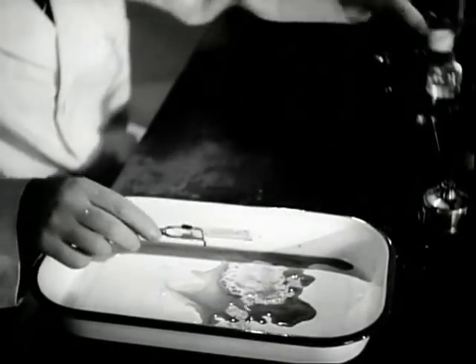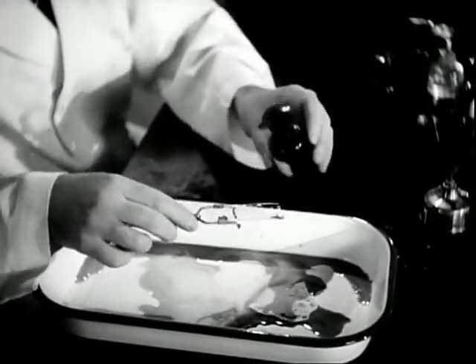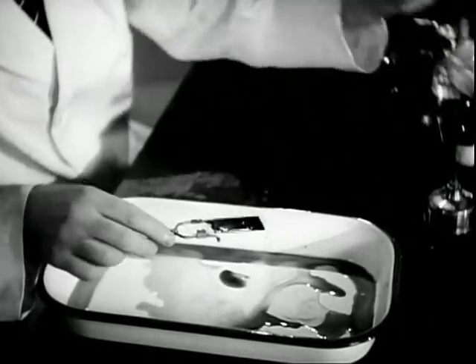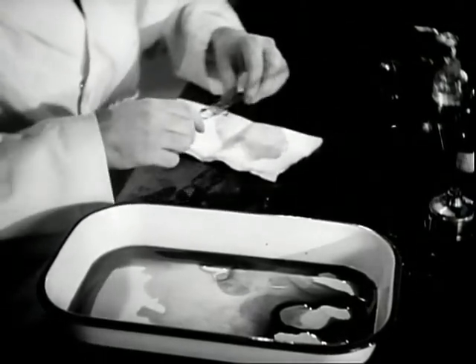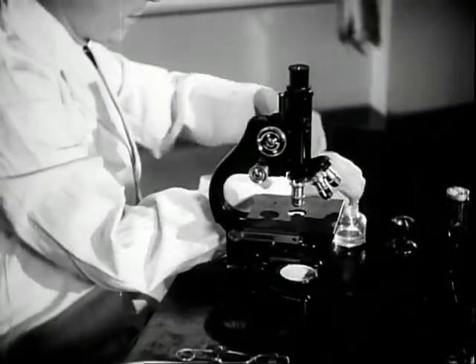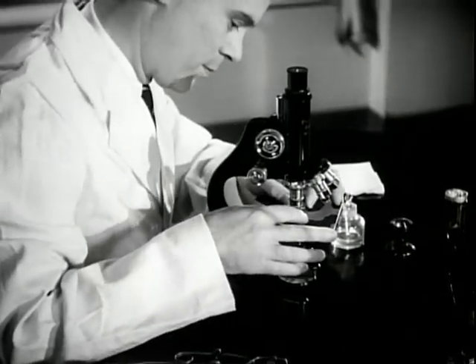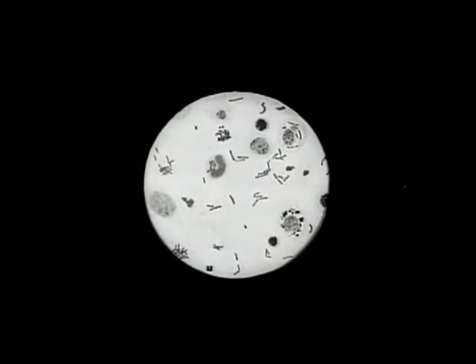The stained smear is then decolorized with acid alcohol until no more color appears in the washings. Finally, the specimen is counterstained with methylene blue. A drop of oil is applied for oil-immersion microscopy.